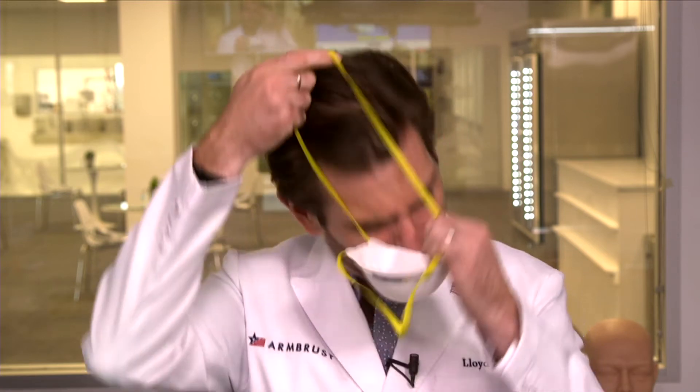This is a standard cup respirator. A lot of people like the fold style, but I prefer the cup — I just feel like it fits my face better. It's got a nose wire up top providing a pretty decent seal. These are a little bit smaller and more round than ours. NIOSH actually tests to make sure this fits a majority of faces — you need both fit and filtration, and if it says N95, the U.S. government has given it a thumbs up. One minor note: the part where the welds are gives me a slightly scratchy feeling on my cheek, but the overall construction is really good.